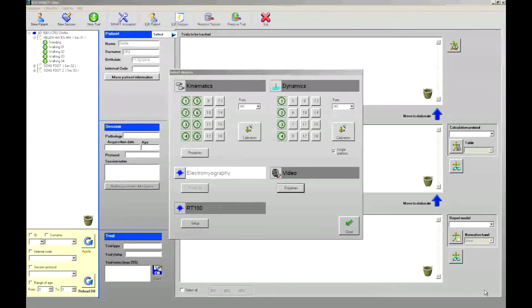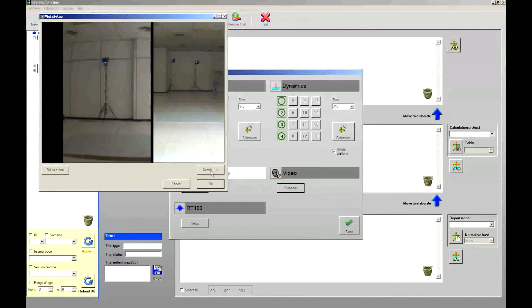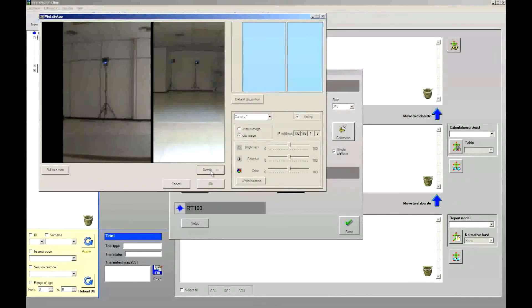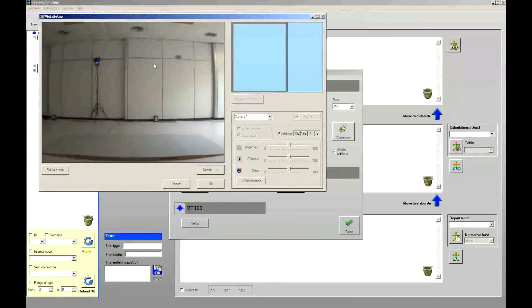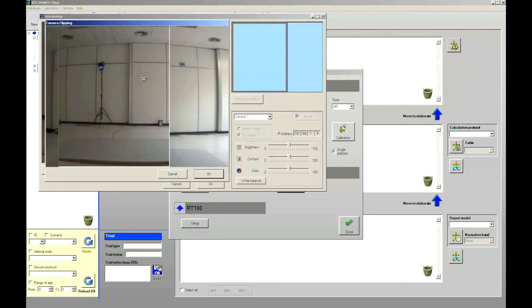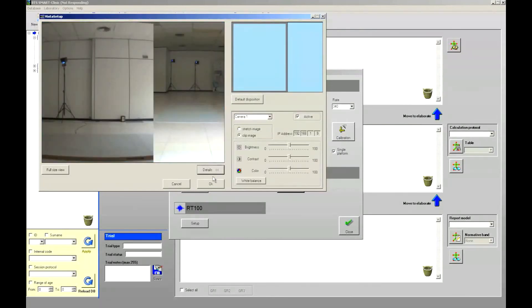The last step is to check the video controller. By clicking on Properties, a window will open showing the real view of each VIXTA camera. If you need to change the visualization of one camera, for example camera number 1, first adjust the sides of the corresponding blue box by selecting and resizing it with the mouse. Then double-click with the mouse on the blue box related to that camera to get its full preview image. By right-clicking on it, you can select Adjust Clipping and move the window that appears to choose the video portion you prefer. Click OK to save the settings and again OK to exit.